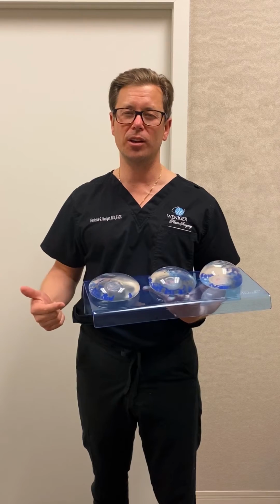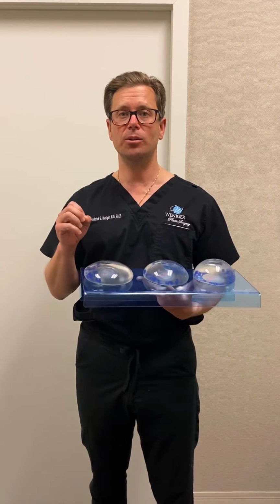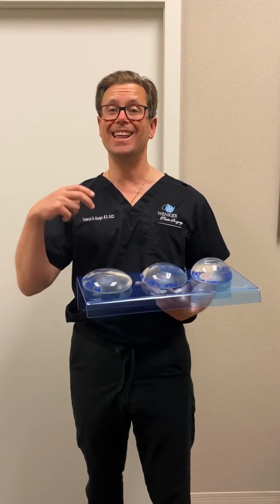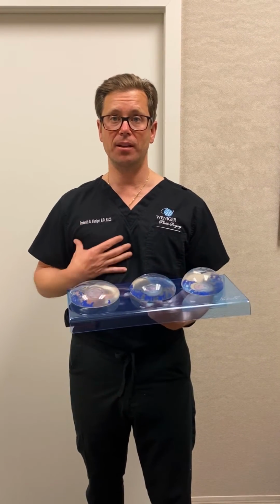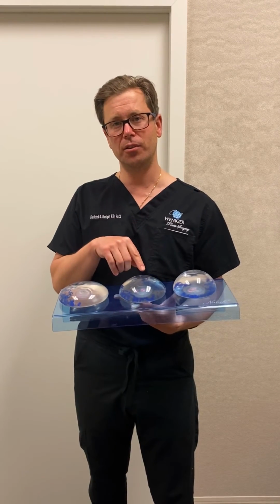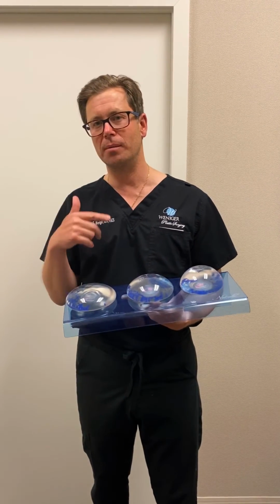So there's really a lot that goes into the decision, but patients are always worried about what cup size or how many cc's. I'm interested in the fit and having the implant fit how wide their chest is, and the different profiles are probably the more important tool in making the fit right.